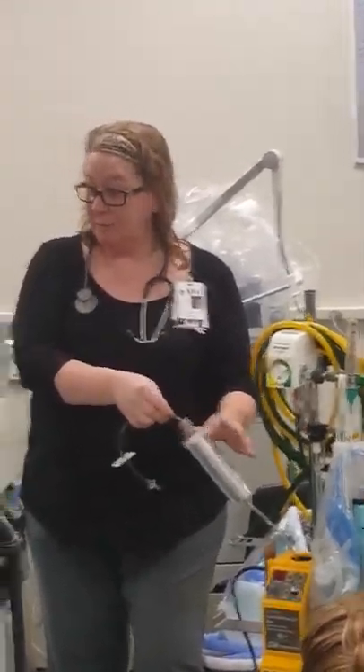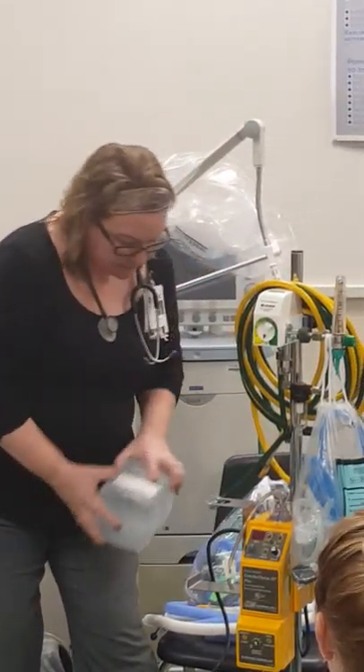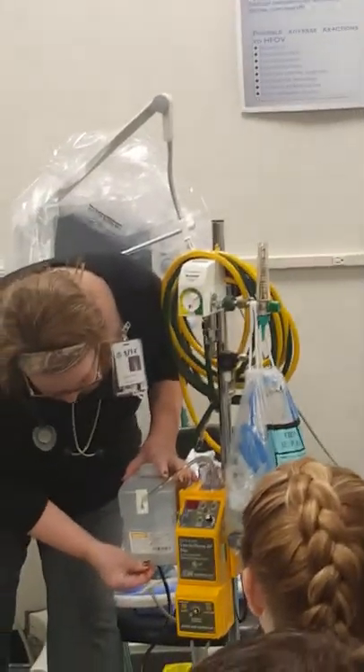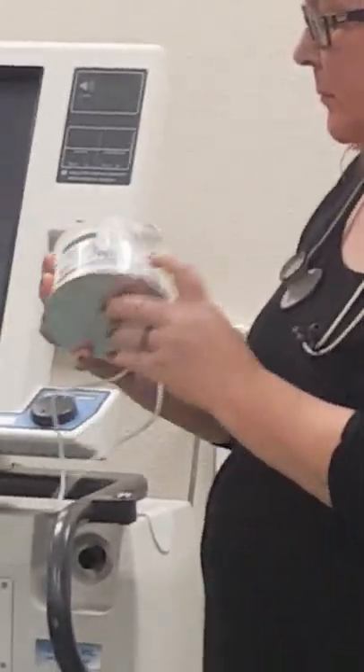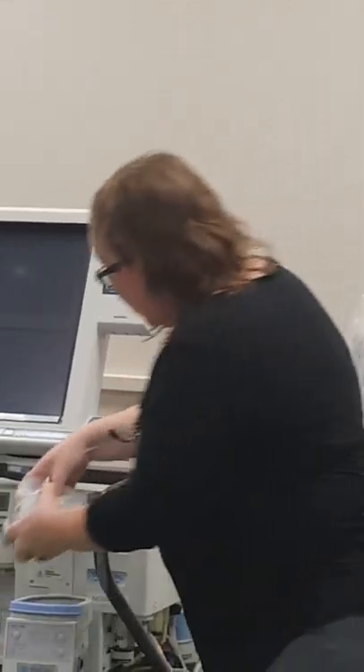These just slide in and out. This gets very hot on the inside, so if you take it out after it's been running, be careful so you don't burn yourselves. I want you to see that both of these humidifiers — whether it's the round cylinder one or the round plastic one — have two ports on the top.